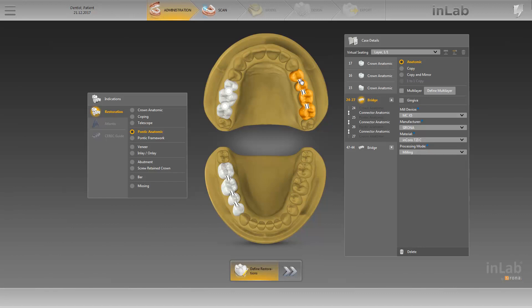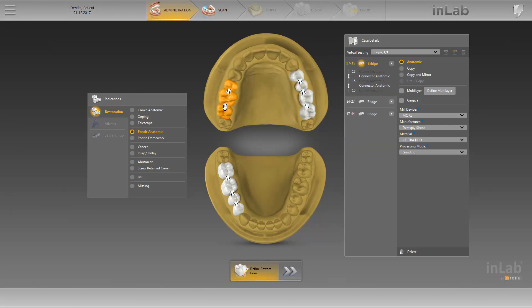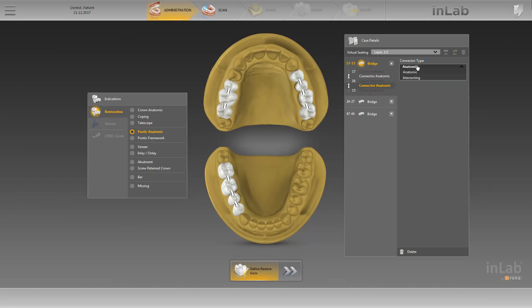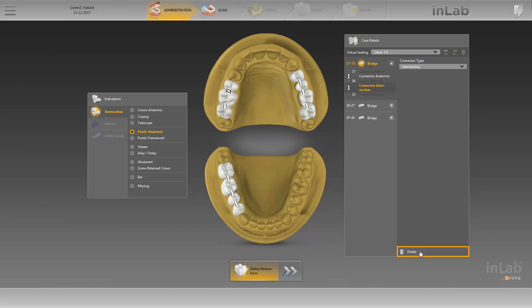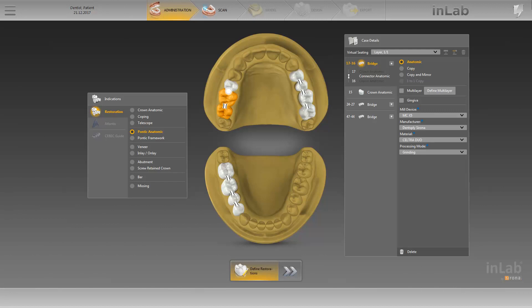Using the restoration in the first quadrant, we will show you an alternative way to change the connector type. We move the cursor over the elements between the restorations and click on them to initially create an anatomic connector for each. The connector type is displayed in the window under Case Details. We click on one of the two connectors and can use the drop-down menu to change the connector type. As this bridge restoration consists of three splinted crowns, only the intersection option is available as an alternative connector type. The new type of connector element is now shown both in the odontogram as well as in the Case Details window. At this point, you can also delete the active element by clicking on Delete. Now we have a single tooth restoration on position 1-5 and two splinted restorations on position 1-6 and 1-7 in the first quadrant.